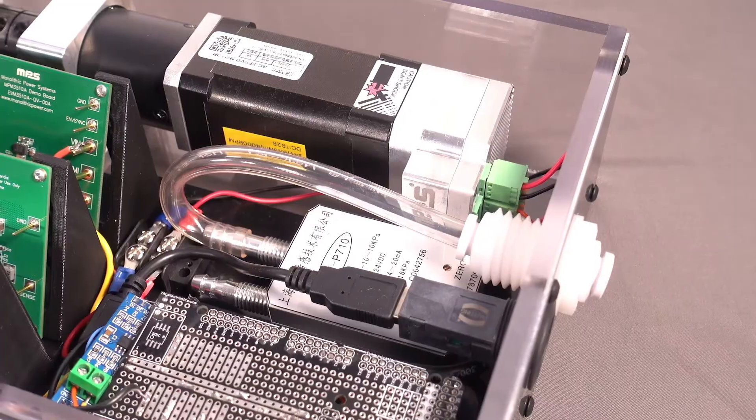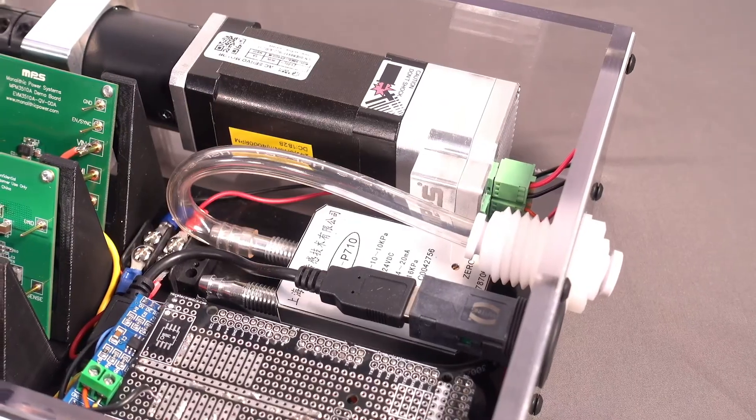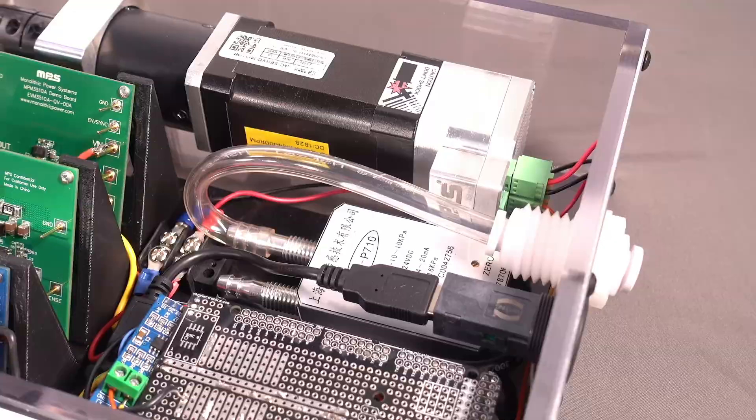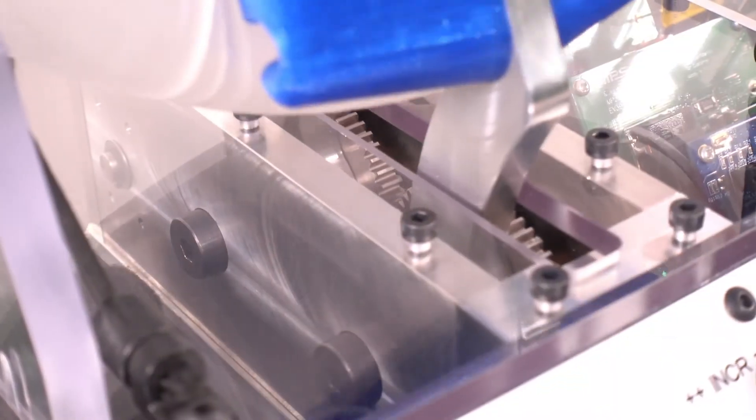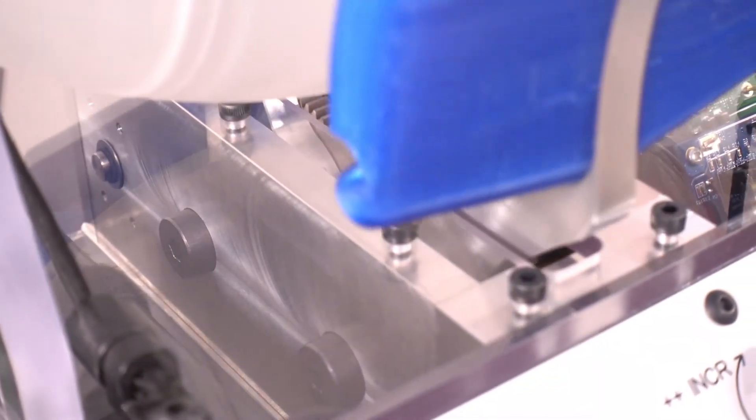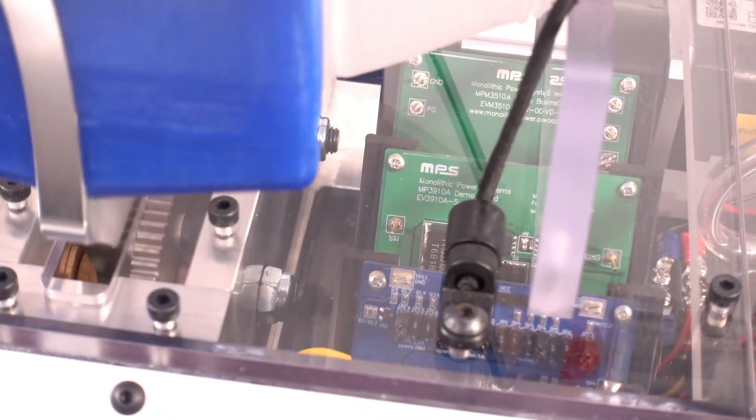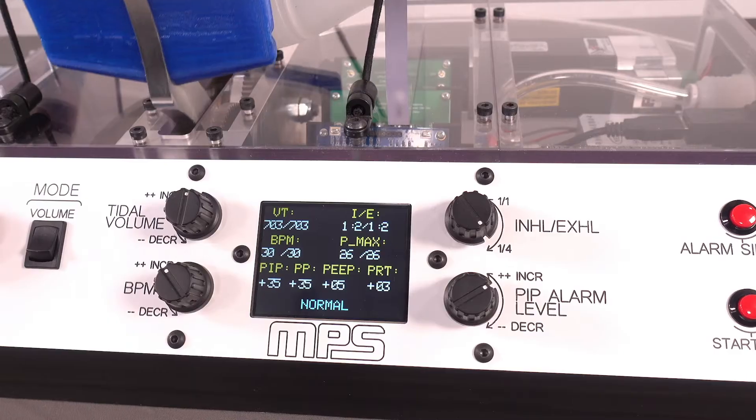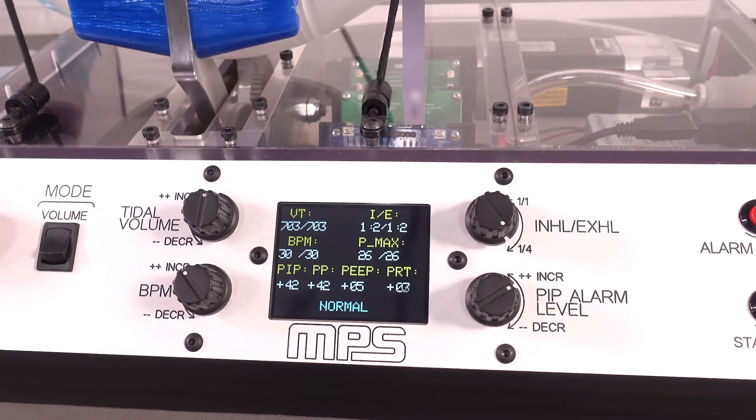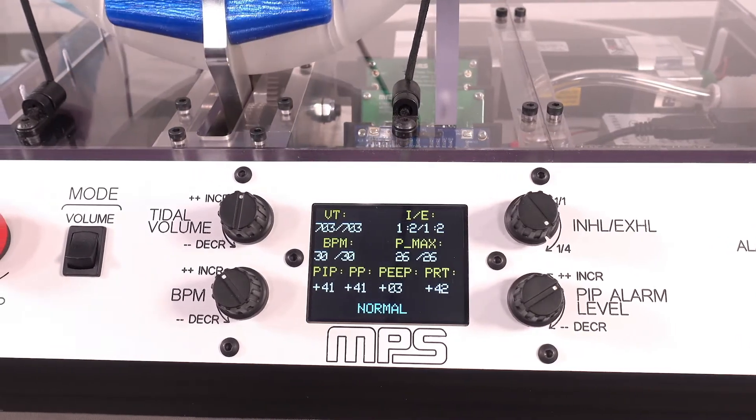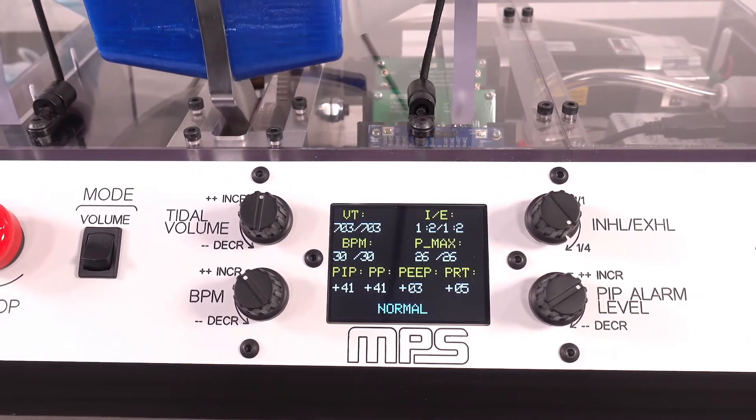These enhanced features of our automated BVM concept are made possible by MPS power and smart motor solutions. Their versatility and easy implementation make them well suited to benefit a variety of applications to give your project the MPS advantage.